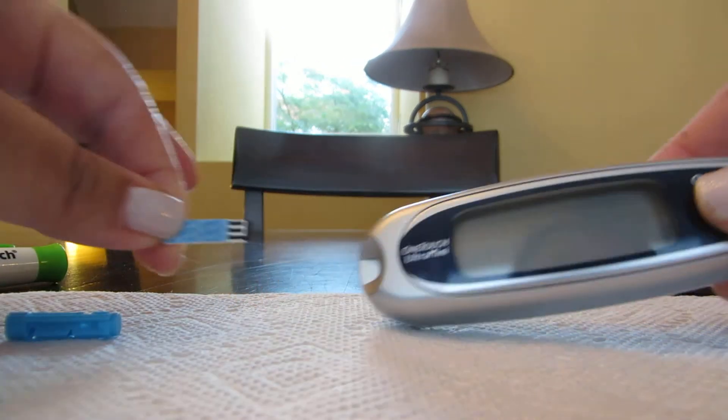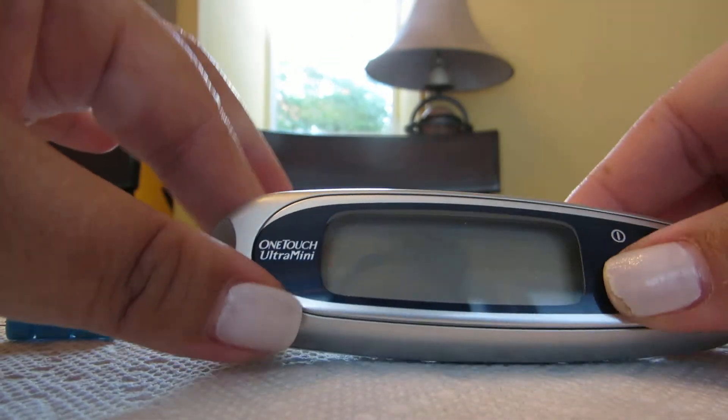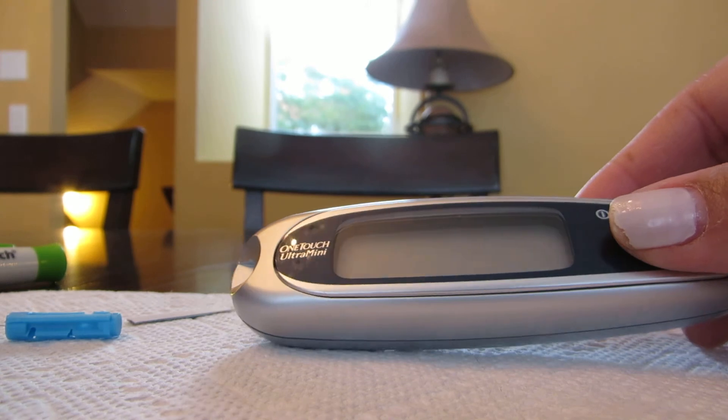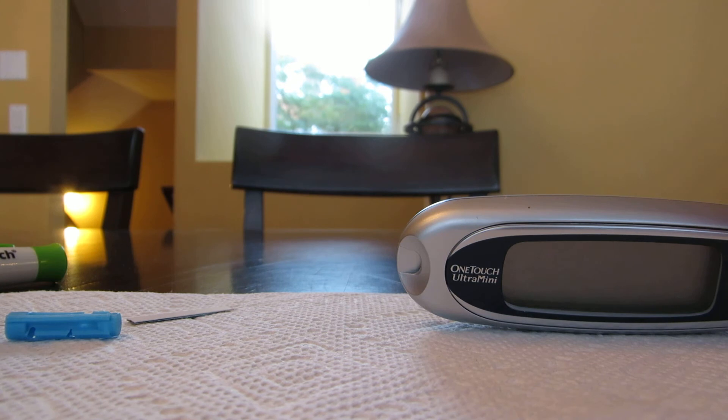You see it's timed out, but we already know my blood was 106, a little bit higher, so I need to exercise a little bit to get it down or just carefully monitor it.